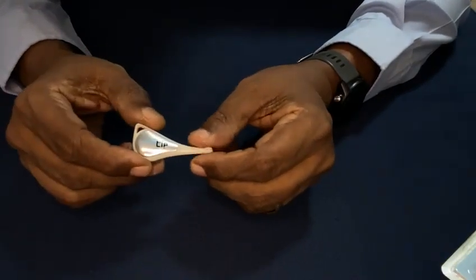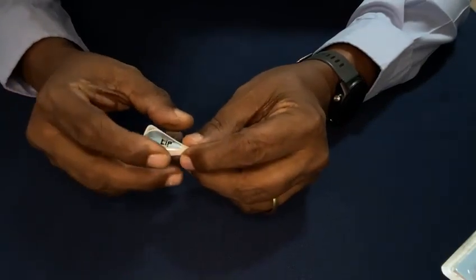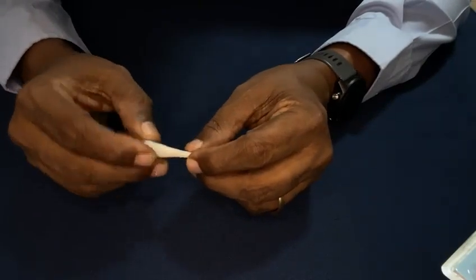The only precaution you have to do is when you are not using it, keep it in a box such that it doesn't get compressed.